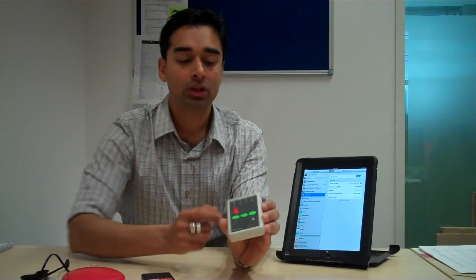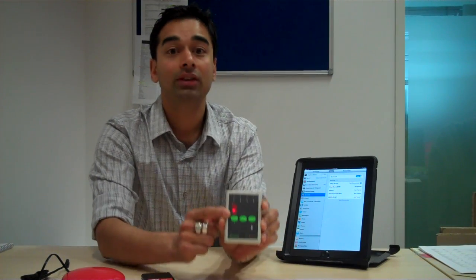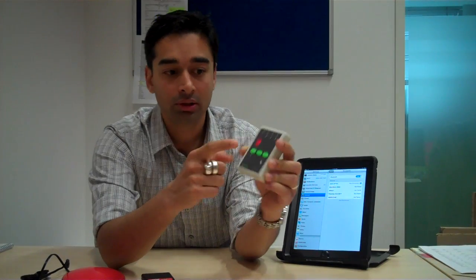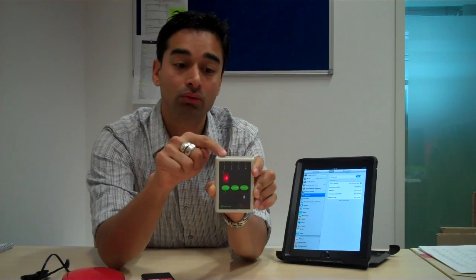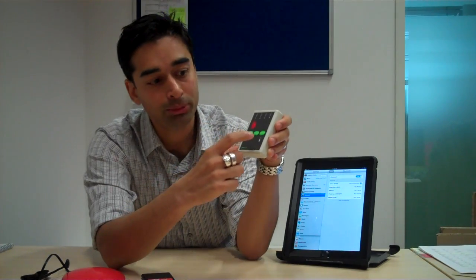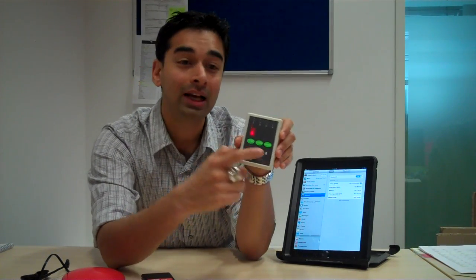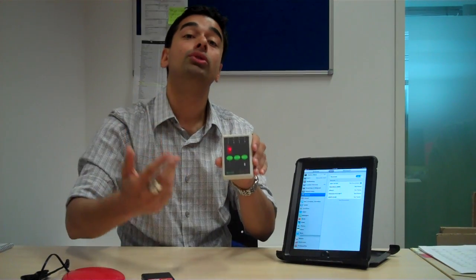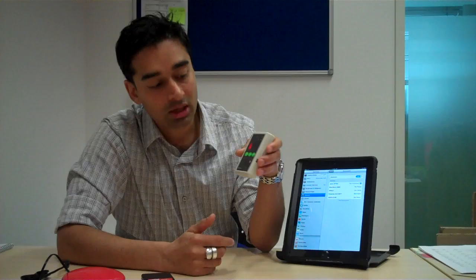Very quickly, you've got three buttons at the top. This particular button allows you to move to the music mode. The button on the side allows you to choose a channel, which is one, two, three, or four switch option. And then button number three, which is called the mode, allows you to choose what the switch interface should do with a particular setting.